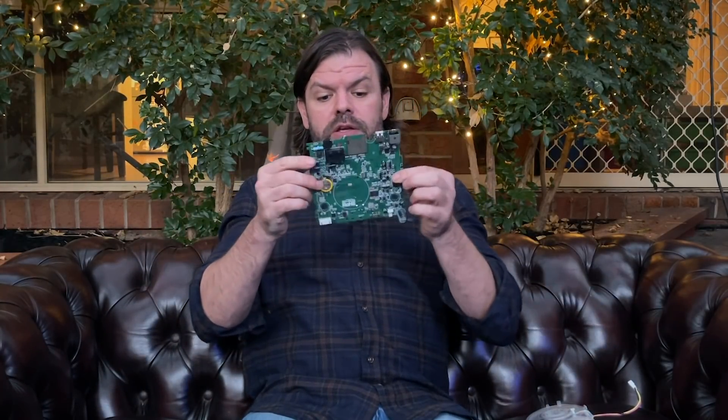If these machines were super high-tech and really complex with heaps of electrical components all welded together, I could understand that. But if you've ever opened up a CPAP machine, there's really not a whole lot to them. I've got some parts here. You've got your turbine — it's just an air pump, brings in air through one end and pushes it out the other. It's got a little connector that you connect to the circuit board, your PCB board, just a little board. Then you've got your little heater plate — once again, one little connection; you take that out, plug it back in, you fix your heater plate. And this is just a little screen — you plug that in and it's done. CPAP machines are super, super basic in terms of their internal components. It's literally plug and play — you take off the shell, grab that part, plug it in and you've fixed it.